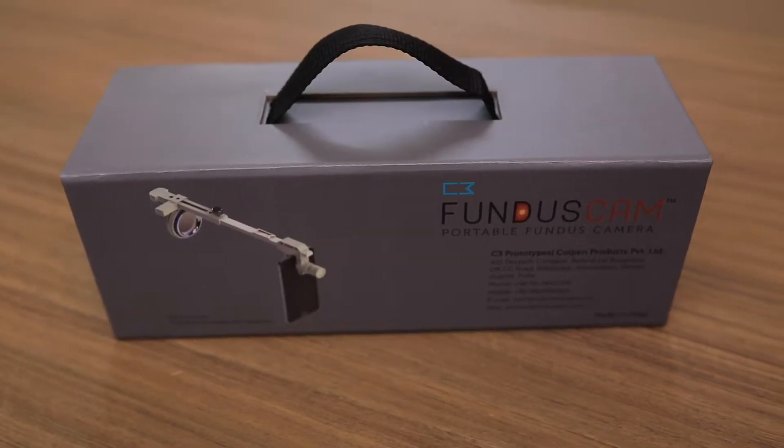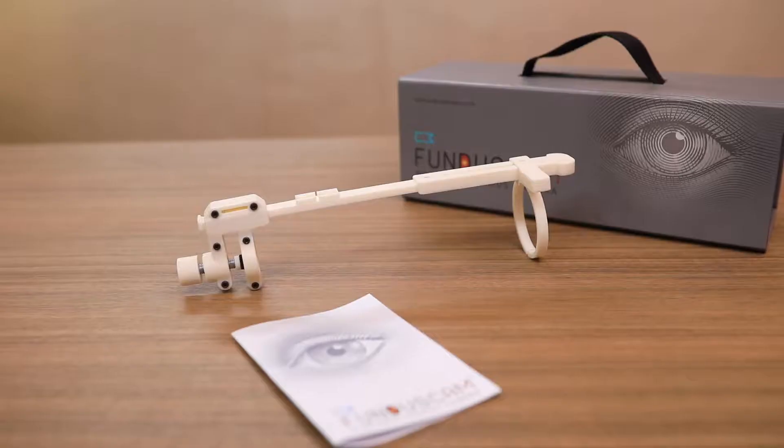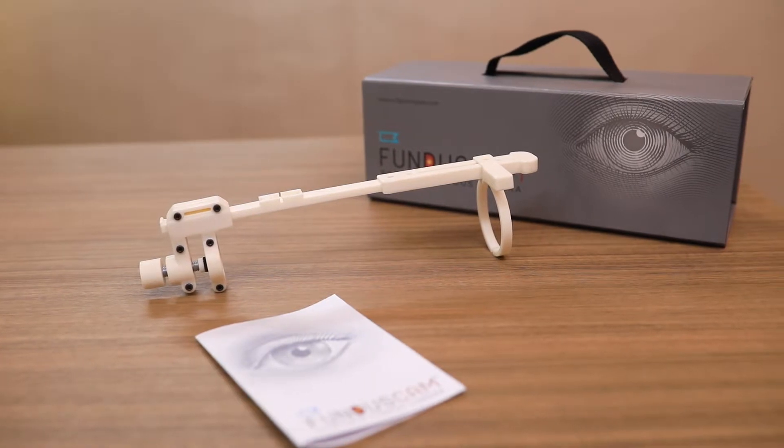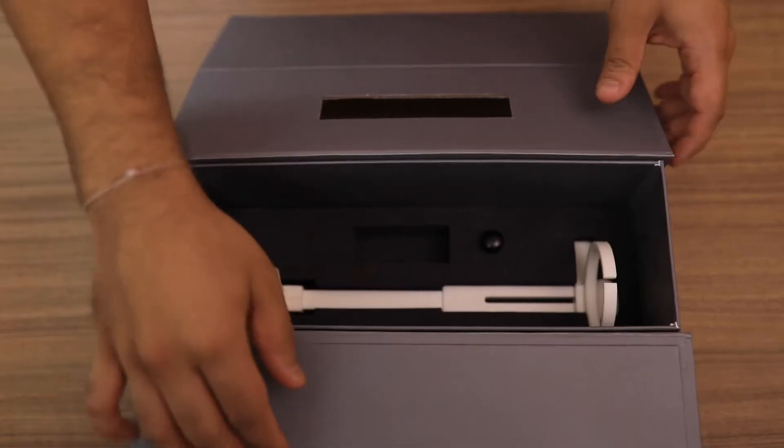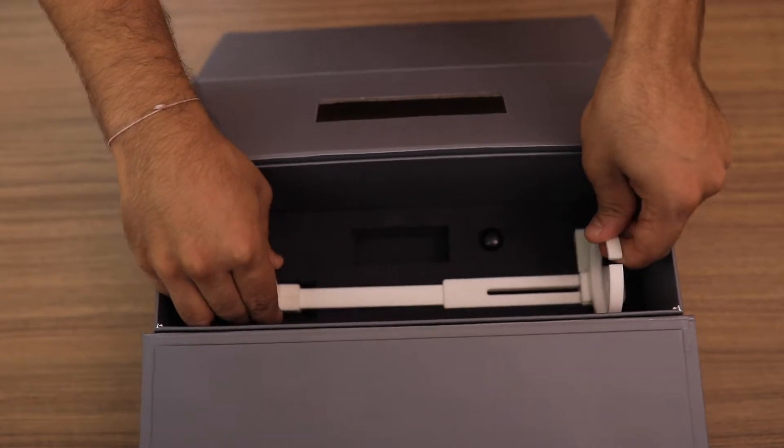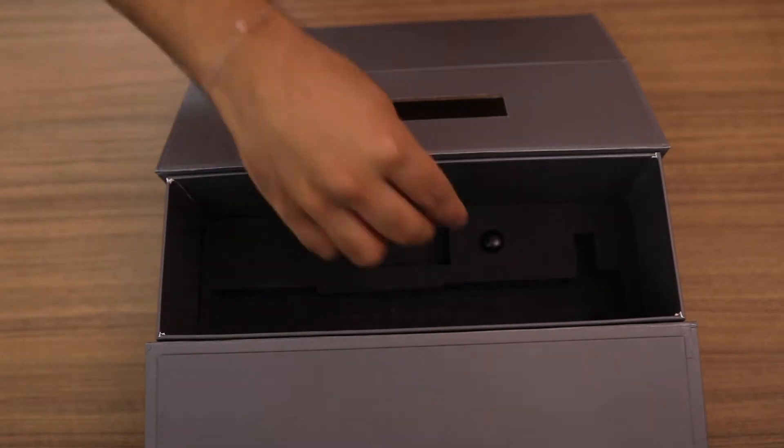With the goal to provide long-term comprehensive eye care solution to reduce visual impairment, C3 has developed the Portable Fundus Cam. A portable, affordable, and easy-to-use device for smartphone retinal imaging.